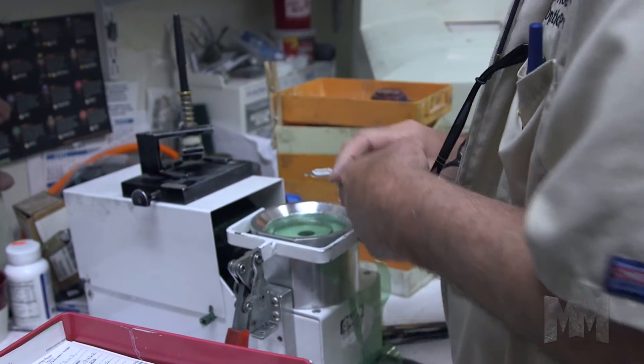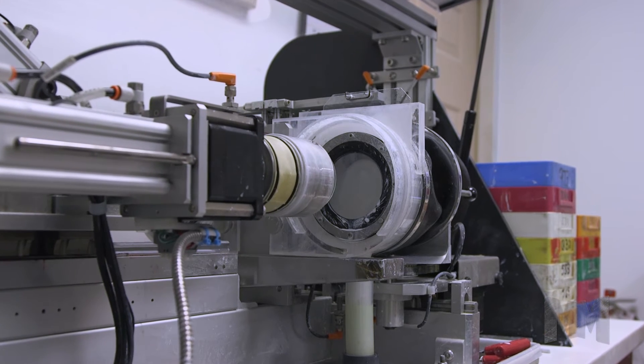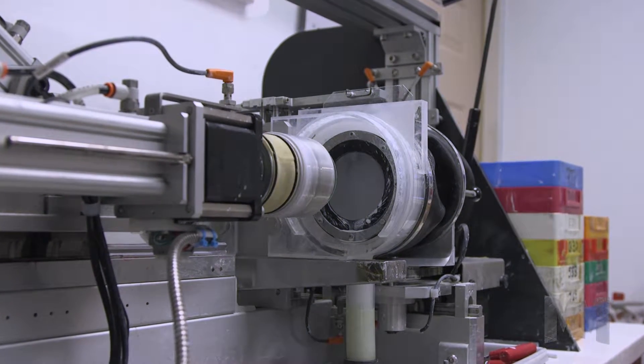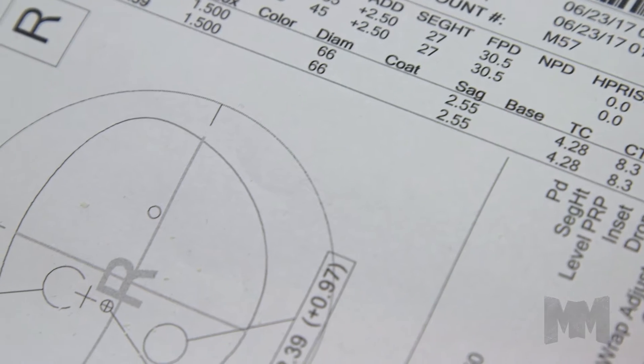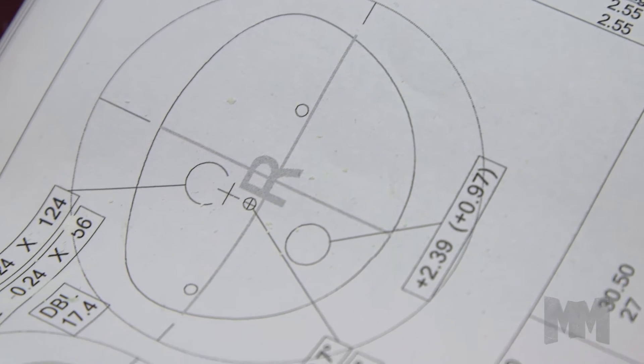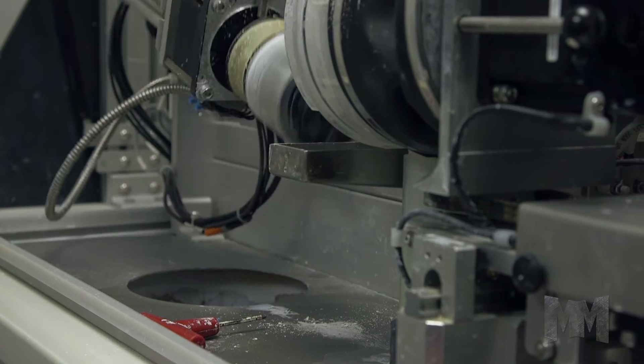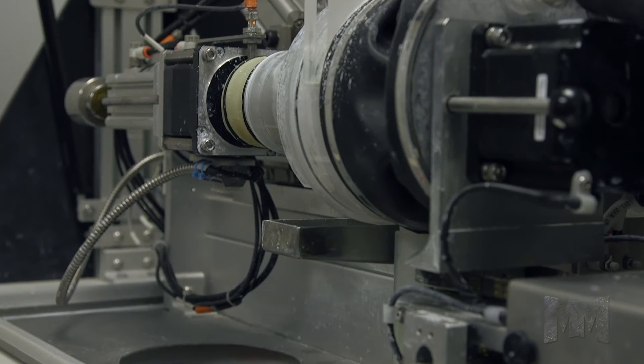NCRX Optical Solutions manufactures one of the world's most innovative lens-producing systems. Its revolutionary design makes lens-cutting and polishing labs more than capable of producing the latest high-definition and digital lenses economically.